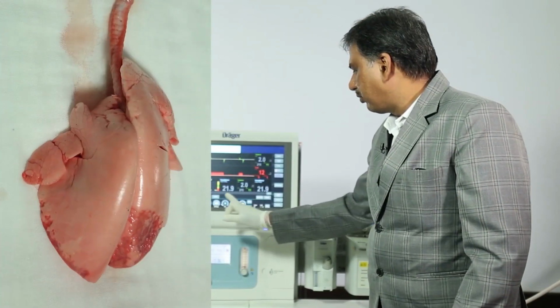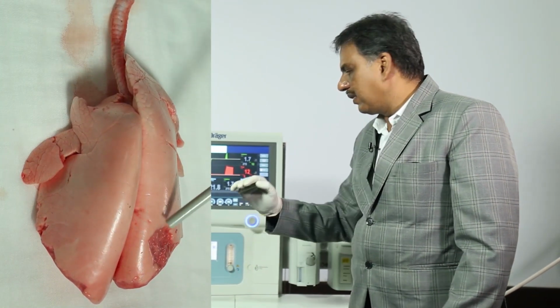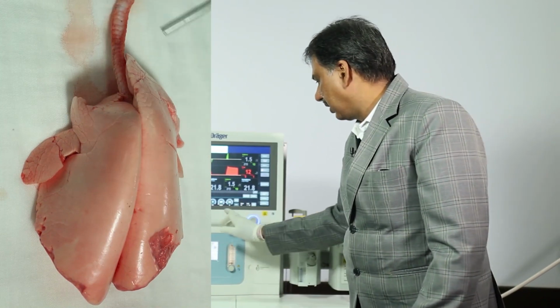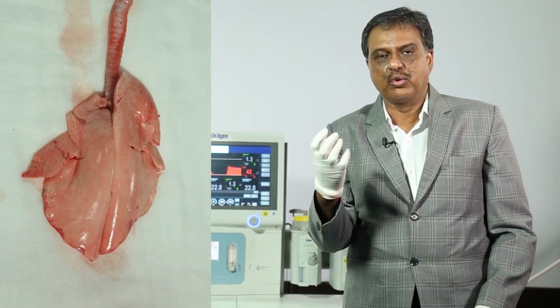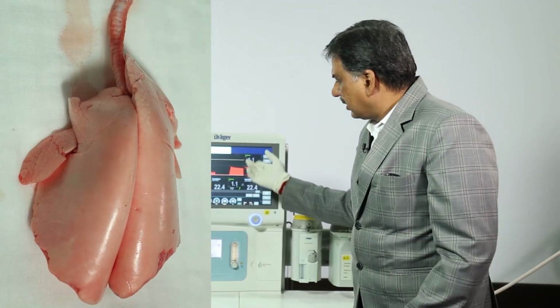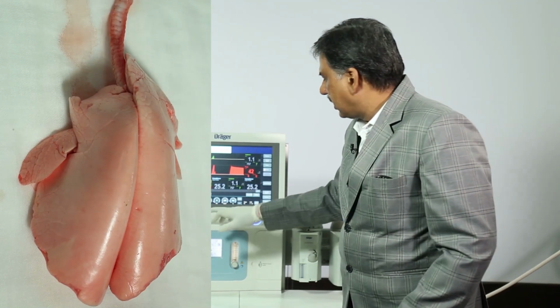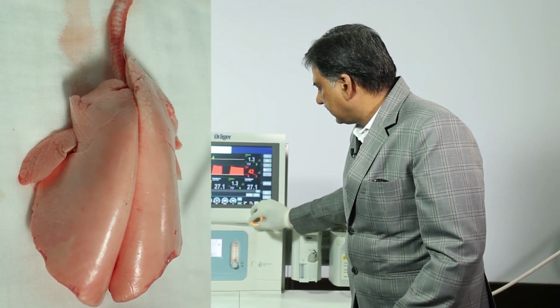When we keep the rate 4 and I:E ratio 1:1, it will deliver 40 centimeter of sustained pressure for 7.5 seconds. So, within this time, this will open all the atelectatic areas of the lung, and then once you recruit the lung, start with the conventional setting of pressure control ventilation.